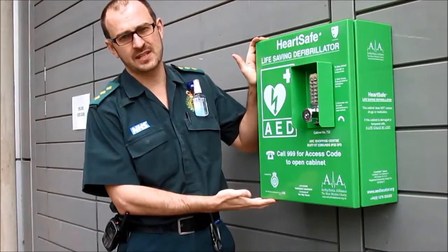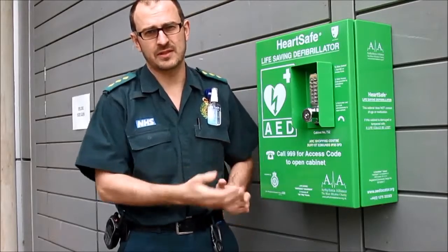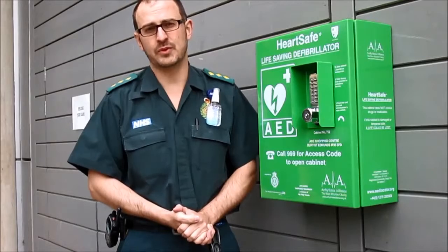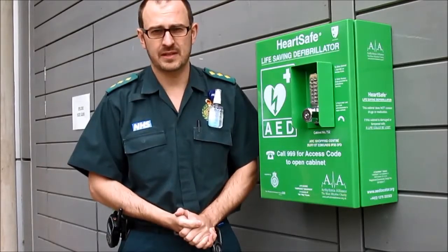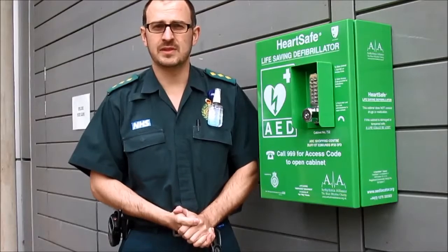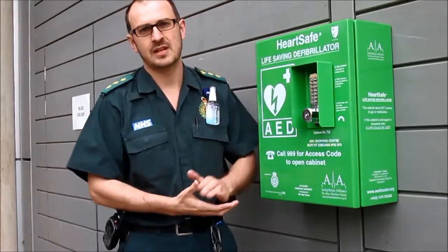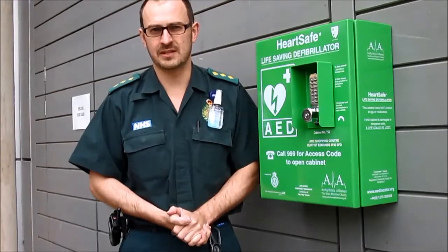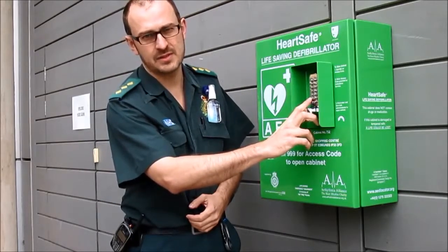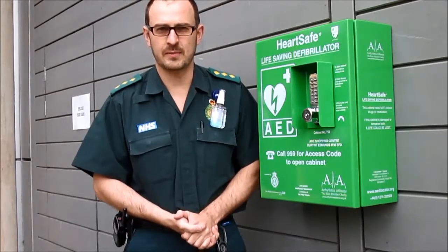This is a cabinet which contains a defibrillator. To gain access to the defibrillator inside, should somebody go into cardiac arrest, you need to dial 999. When you're put through to our control room, they will ask you the details of what has gone on. When it's been determined that there's a cardiac arrest, they will inform you where the nearest cabinet is and ask you to send somebody to go and collect the defibrillator. They will also give you the code to put into the cabinet to gain access for the defibrillator and then ask you to bring that back to the patient.